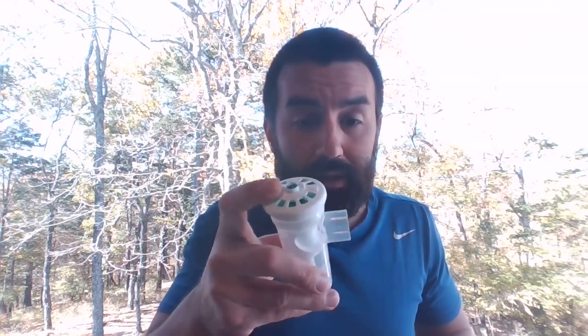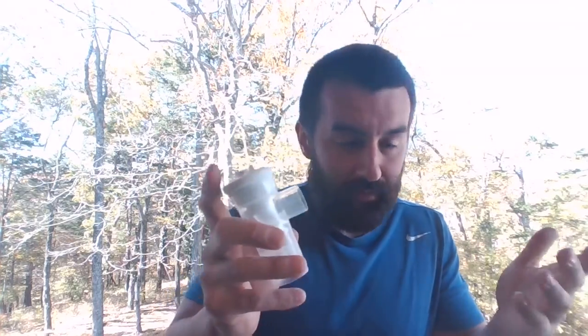If you do a mask treatment on your competency and you do not put this patient on the continuous aerosol output, not only are they not getting the medication, they're not getting gas coming through this, okay, that would be a fail. So it's important that that's the first thing you do, and you make sure when you hook this up, you get gas and aerosol coming out of it, all right?